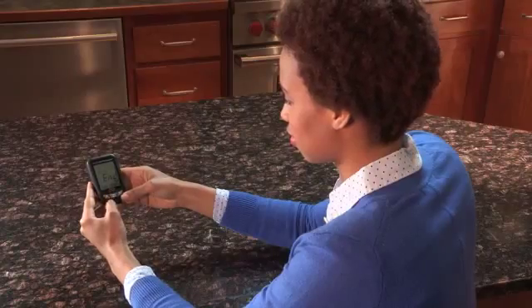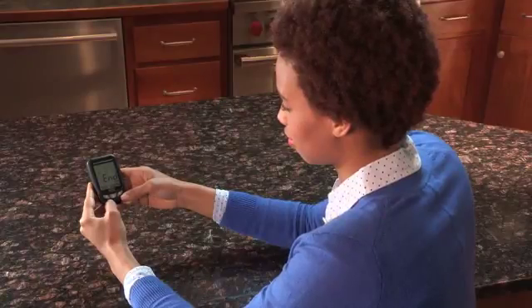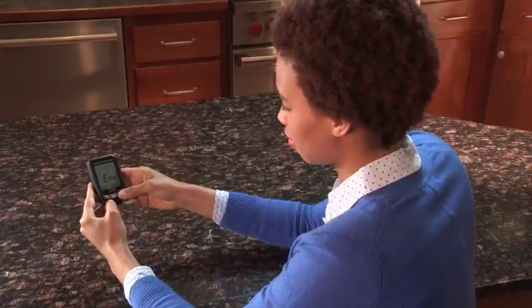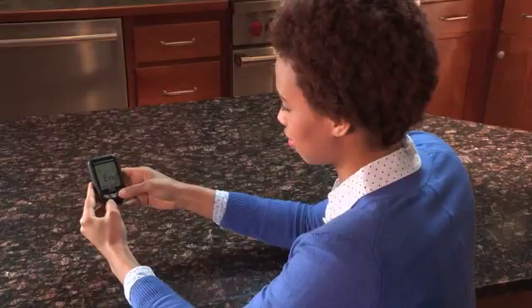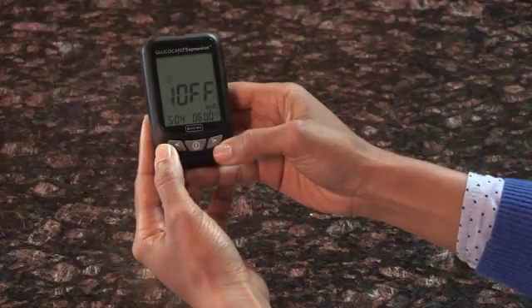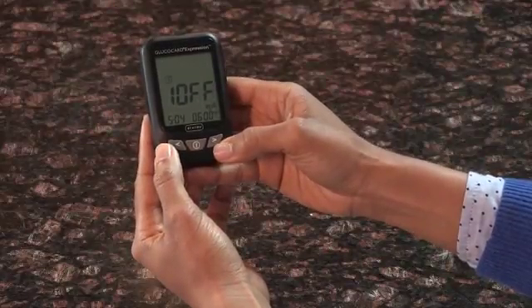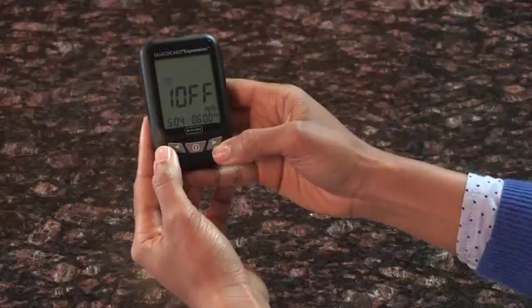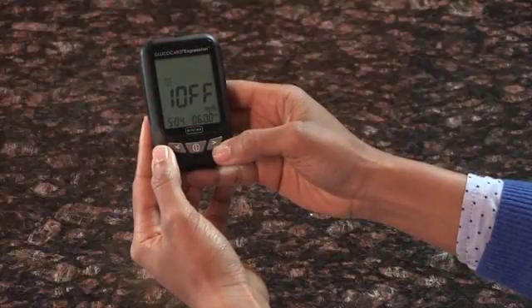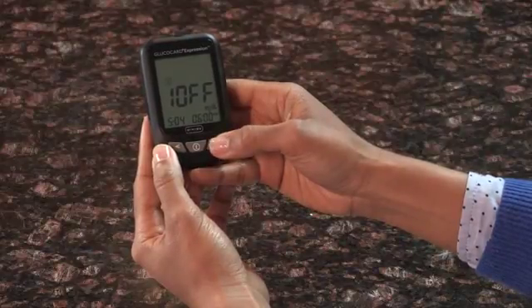Your GlucoCard Expression comes equipped with three alarms. To set the alarms, press the Enter button on your meter to enter Setup Mode. Press either the left or right arrow until the alarm clock icon is highlighted and begins to flash. Press Enter to enter the alarm setting. From here, the display screen will indicate Alarm 1 status. The default is off. You can turn the alarm on or off by pressing either the left or right arrow.